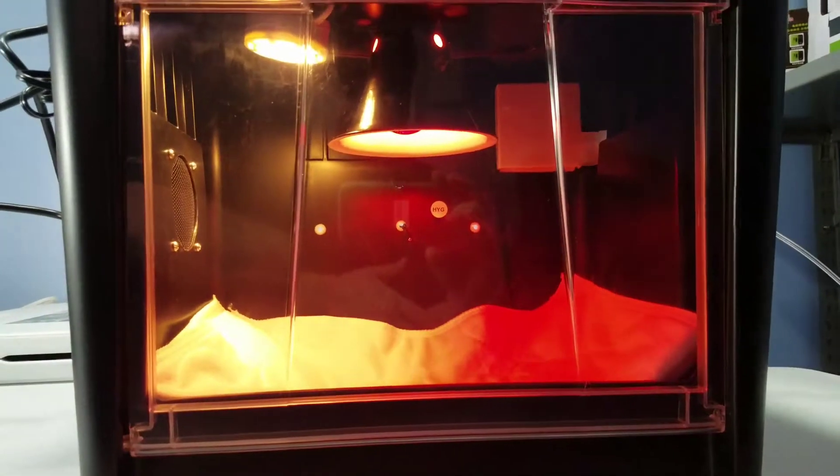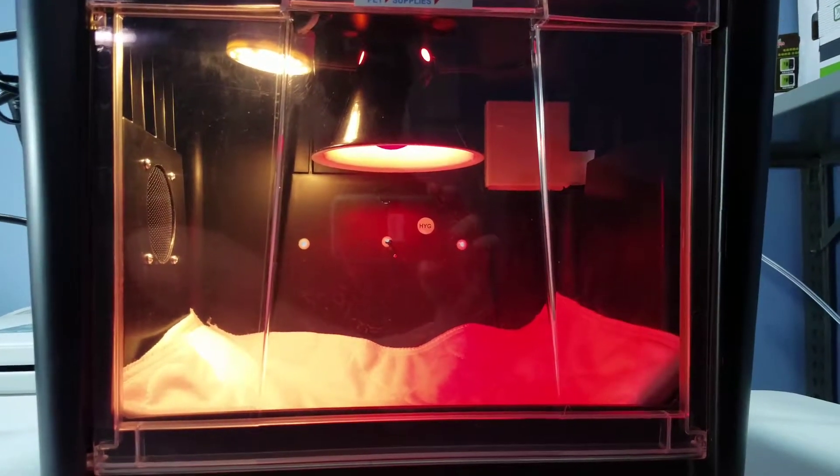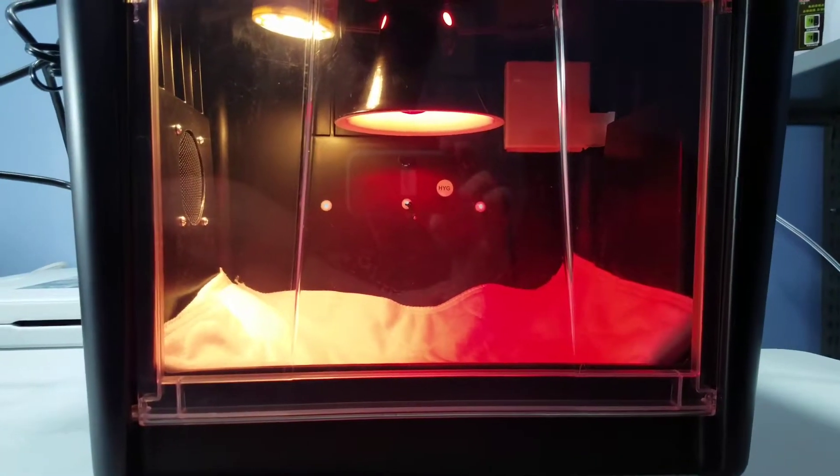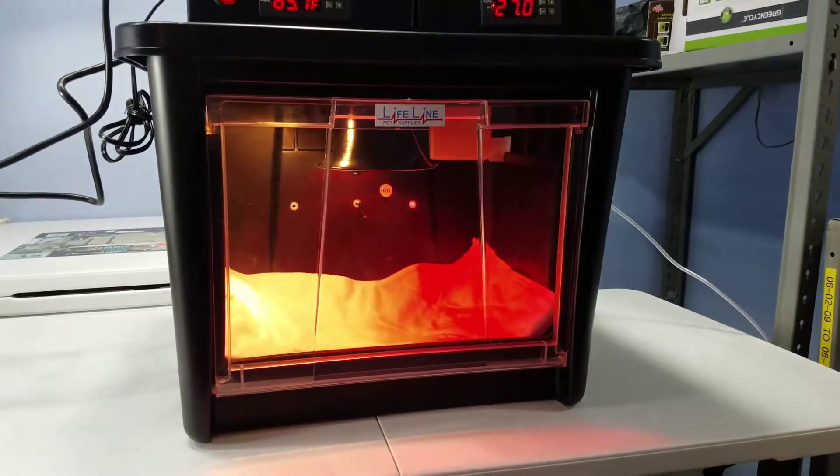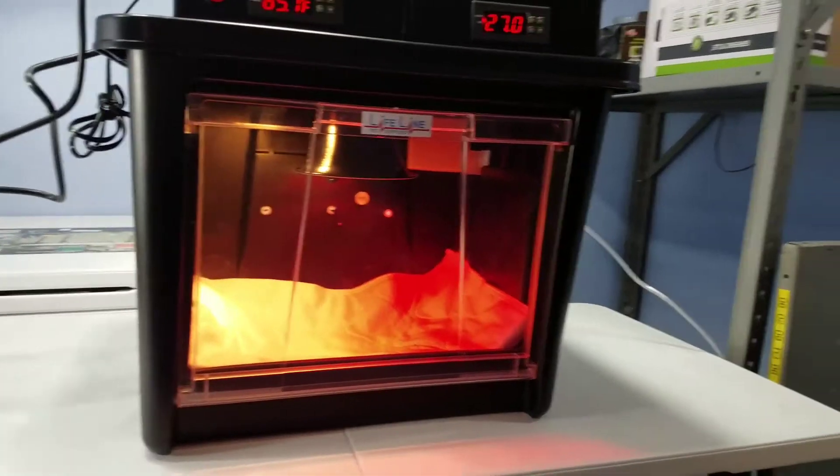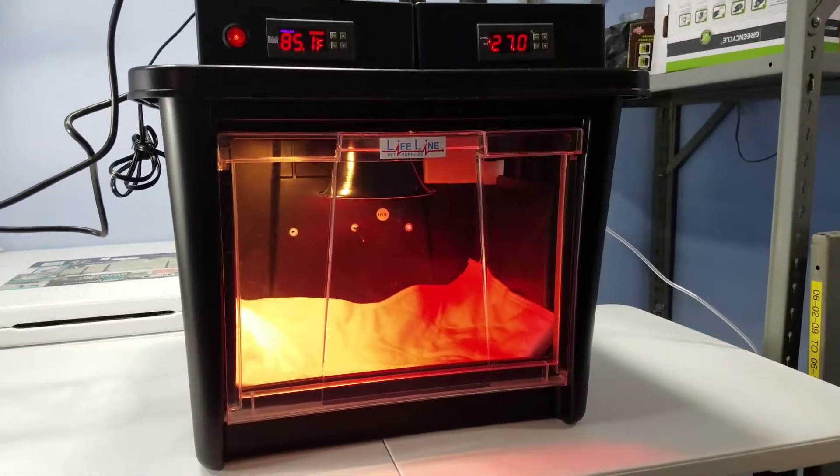In the back, that little square box that you see back there folds down, holds a small cup of water with a sponge or a rag. Most areas will be able to maintain the humidity with this method. If not, then you may need to purchase the digital humidity system. Thank you.